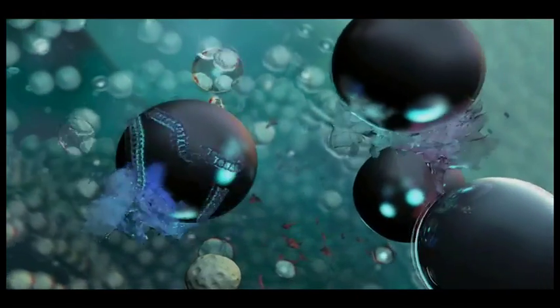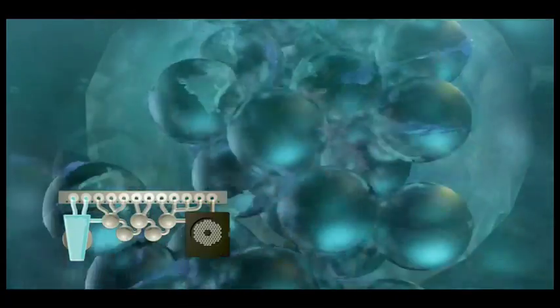These nucleic acids are then bound by magnetic beads which are then moved from the lysis chamber to the purification chamber.